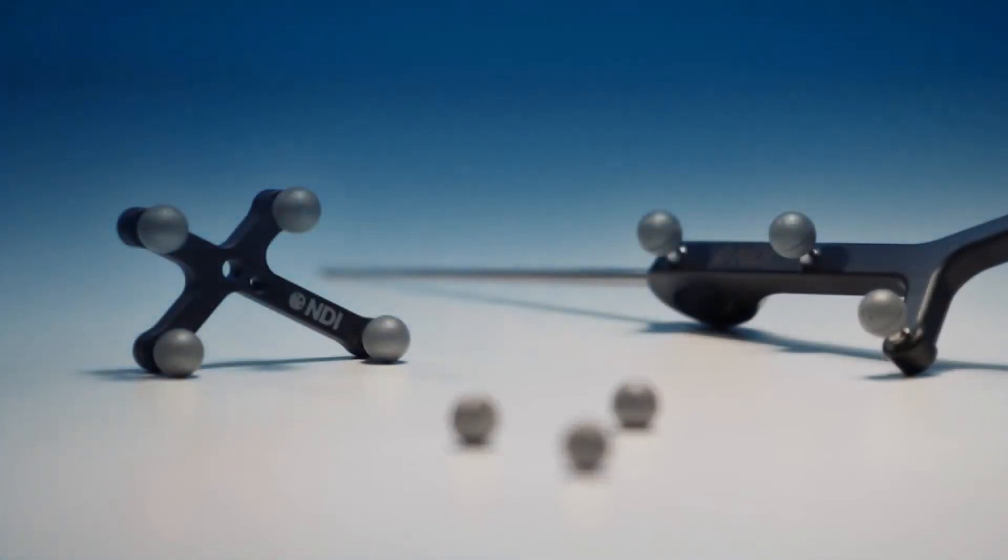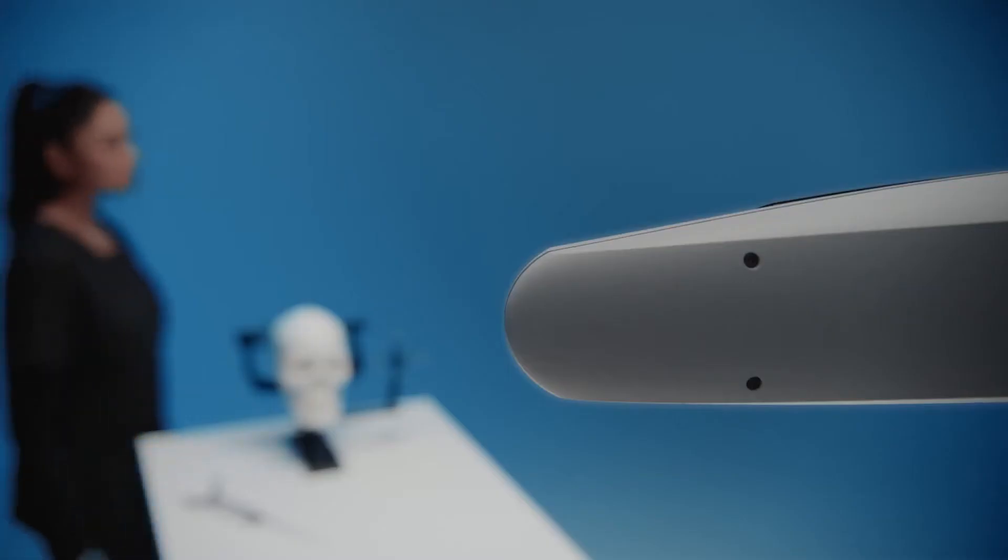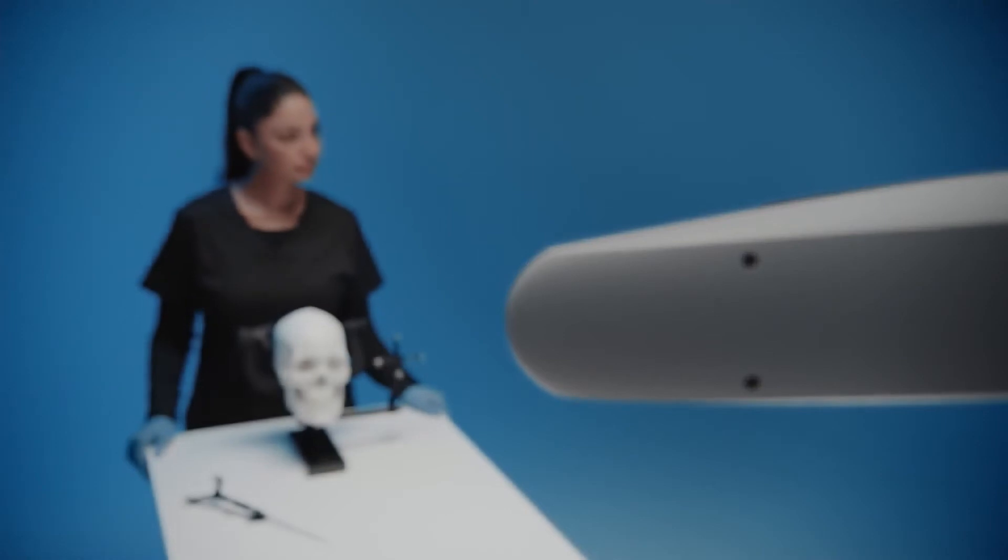NDI is the leader in optical tracking technology used by global medical device companies and pioneered the development of the passive marker sphere.